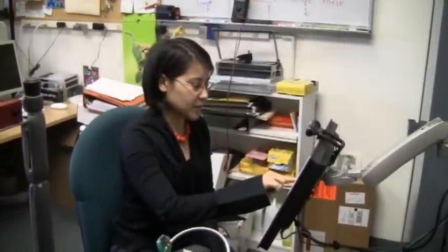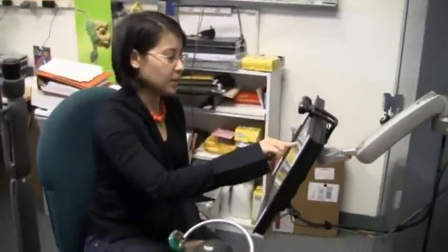Okay, alright, so I'm going to select the bottle of vitamins from the screen.